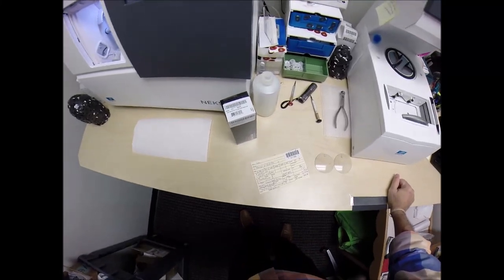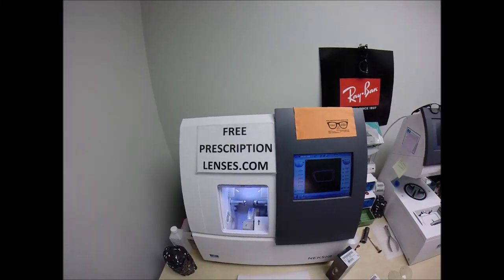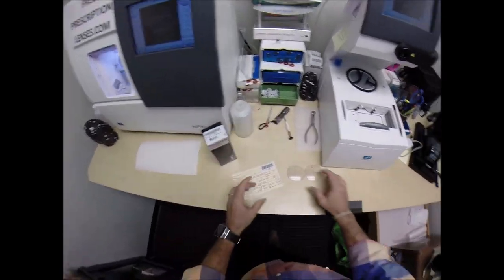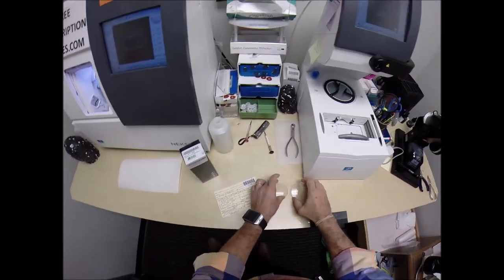Jim in Fargo, North Dakota. See more better with FreePrescriptionLenses.com. And today I'm going to cut the invisible bifocal, the Essilor Ideal Advanced.